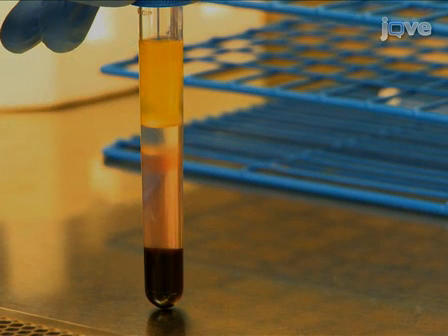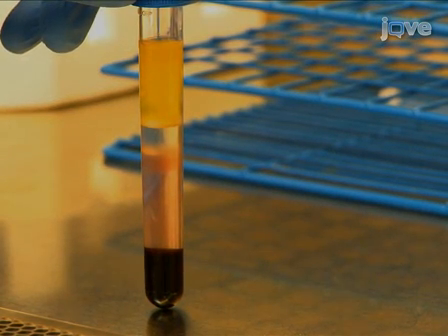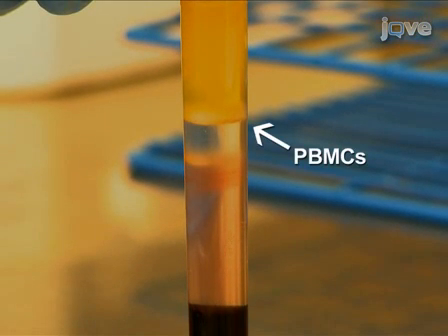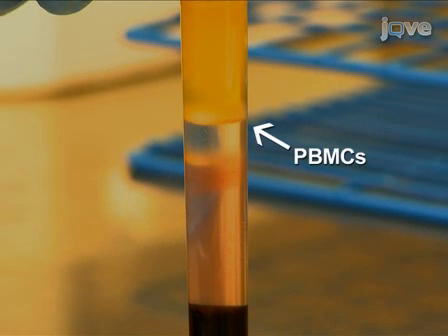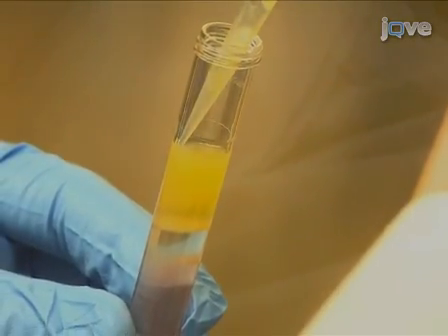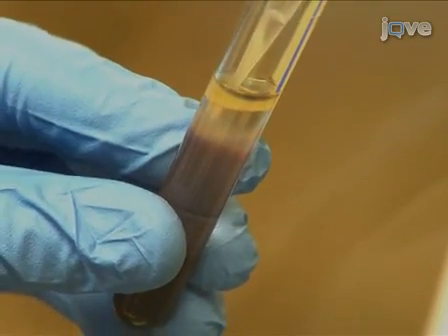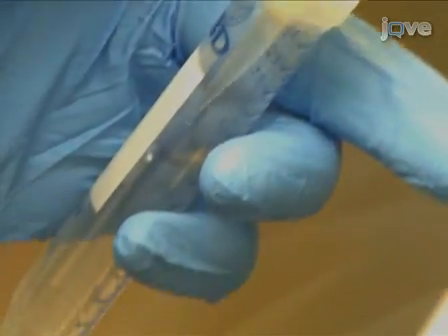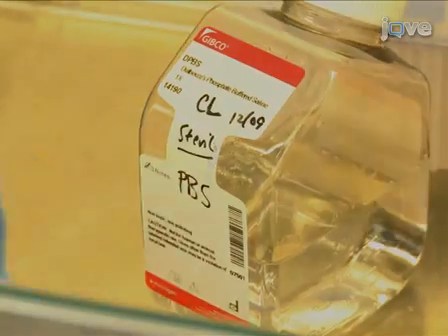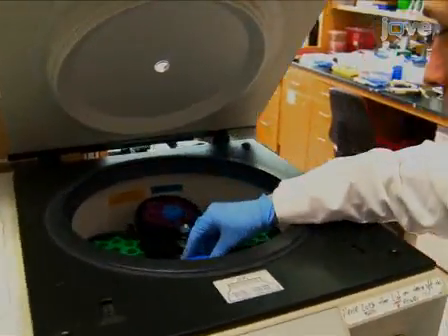Following the centrifugation, the peripheral blood mononuclear cells, or PBMCs, have been separated from the other blood components. The PBMC layer appears as the first cloudy band from the top. Under sterile conditions, carefully remove and discard the clear yellow-colored upper phase. Then use a P1000 micropipette to transfer the PBMC layer to a new conical tube. Wash the PBMCs twice with PBS, centrifuging cells at 500 g for 5 minutes each time.